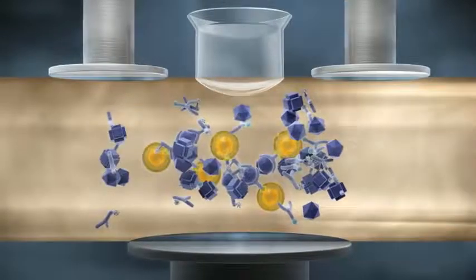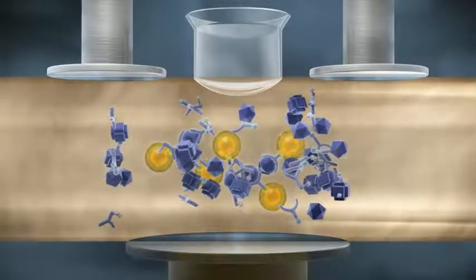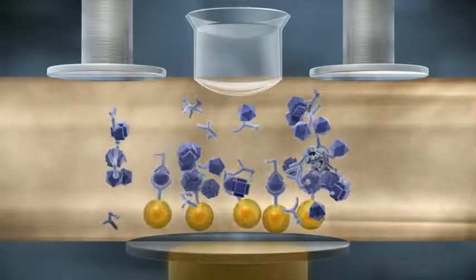The solution is aspirated into the measuring cell, a magnet is applied, and the paramagnetic beads bind to the surface of the measuring cell.